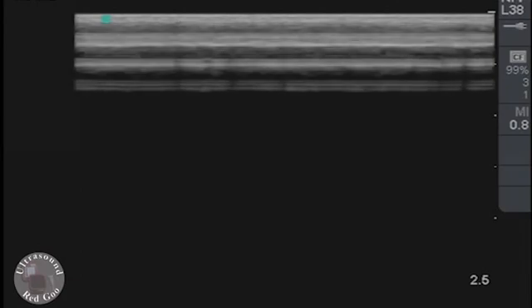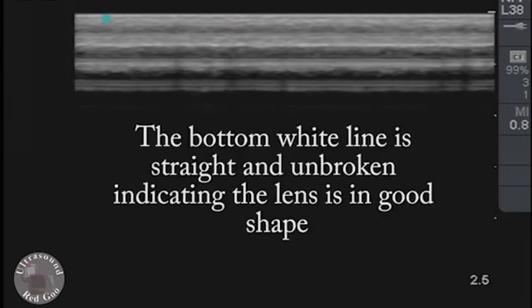Now as I look at the bottom or the far field of the ring down, I'm looking for any discrepancies or unevenness. This could indicate damage to the lens.